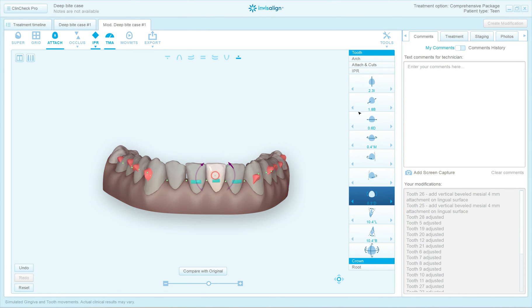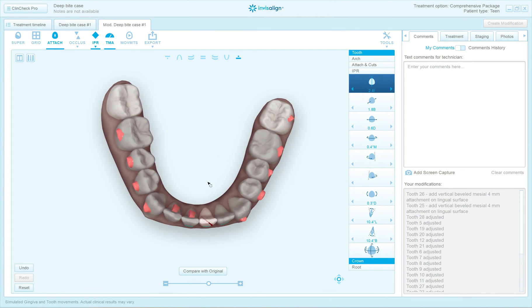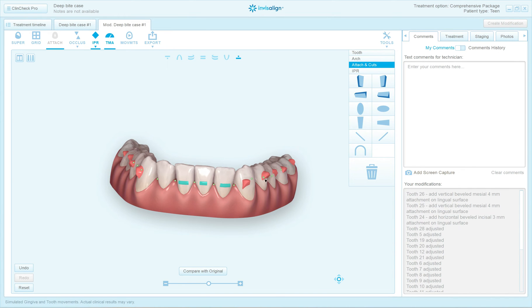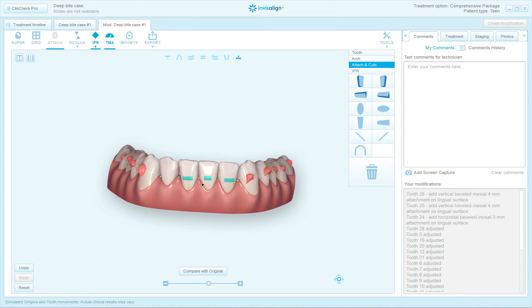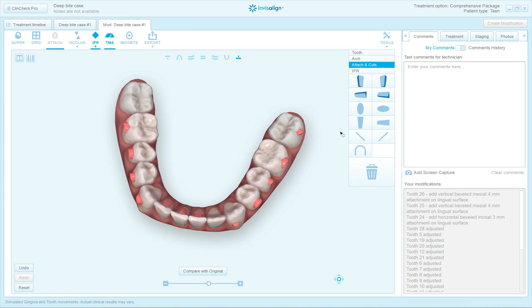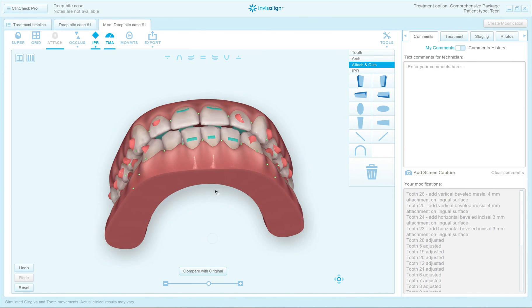Then I just go back and forth. For this particular tooth there's really no change in angulation, but there's a lot of intrusion. So I'm going to add a horizontal bevel incisal attachment — it's a good attachment; the bevel is on the incisal, which is good for intrusion. I'm going to add it to the lingual of that tooth. I'm adding these to the lingual because, number one, with these power ridges for torque you can't put any attachments on the facial surfaces, and also there will be bite interferences if we don't add them to the lingual. I'm adding this same attachment to the next tooth as well.